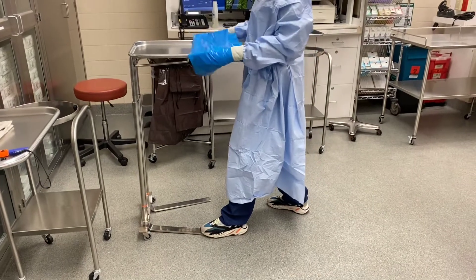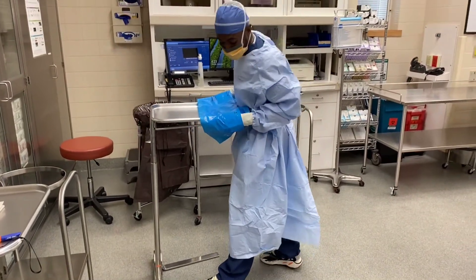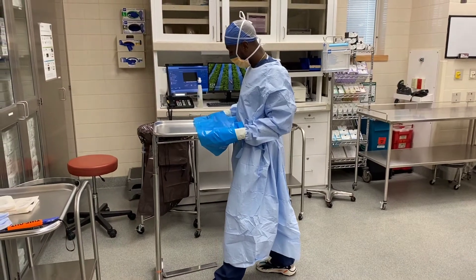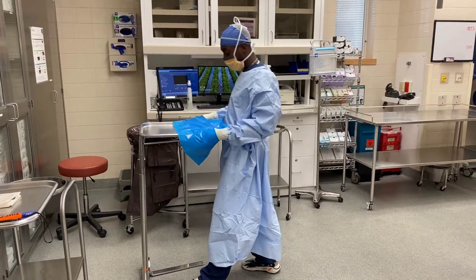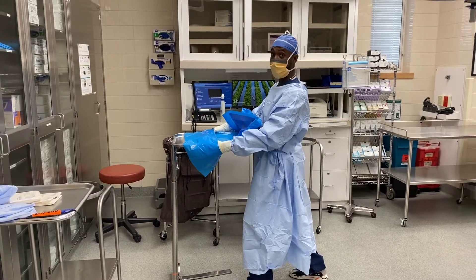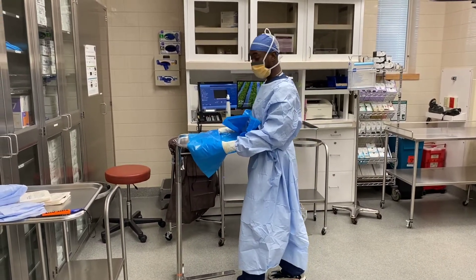You put this right over the hole, and then I pull it in a little bit closer, that way I can put my body against the mayo stand and against the drape. Because if you don't put your body against it and you start to do that, the drape will hit the floor. You always keep your body against it.